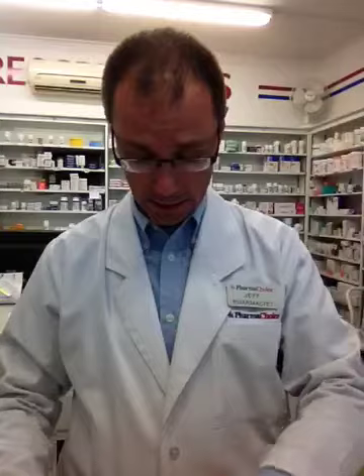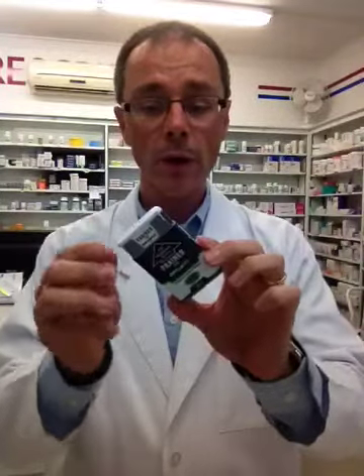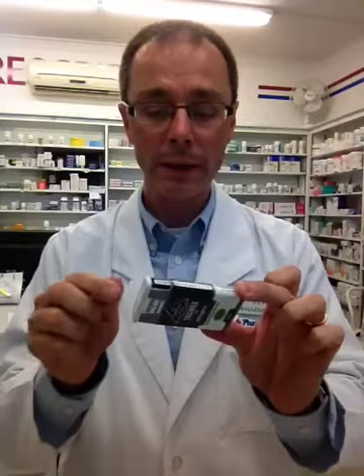The other thing that the Allerject product features — again, this is just a trainer — is that it will actually speak to the individual and assist them step by step on how to use the product to administer it into someone who needs it. When I pull this off, it's going to start talking and explain first that it's just a trainer, and after that it will describe how to use it.